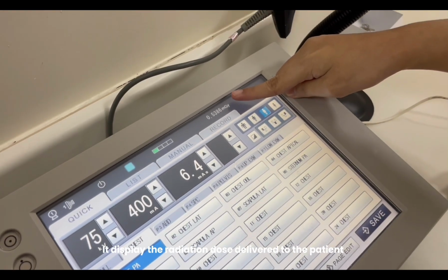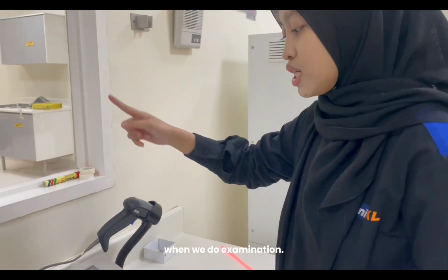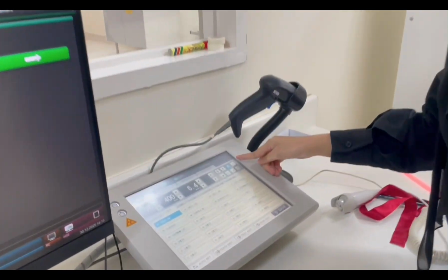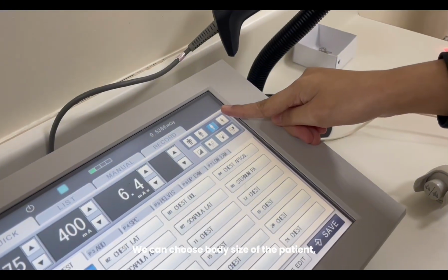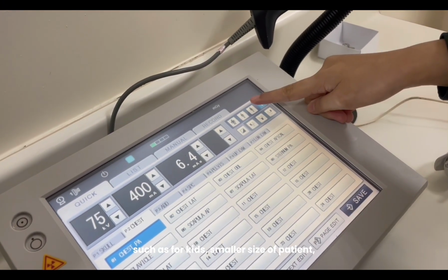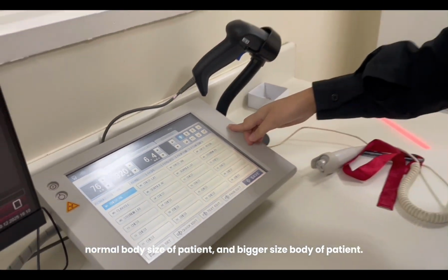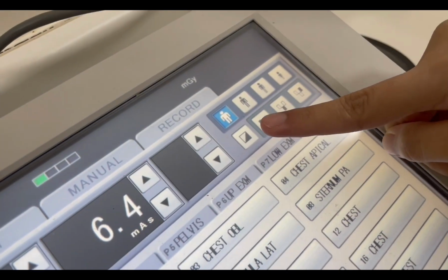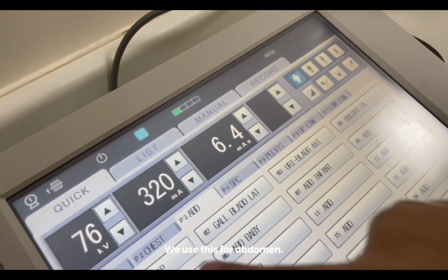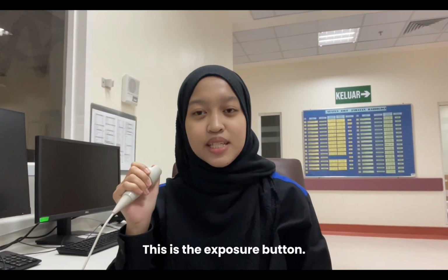It displays the dose delivered to the patient when we do the examination. Then we have patient body size. We can choose the body size of the patient. This is for kids, a small patient, normal size, and a bigger body size patient. This is green. We use this for abdomen, in auto setting. This is the exposure button.